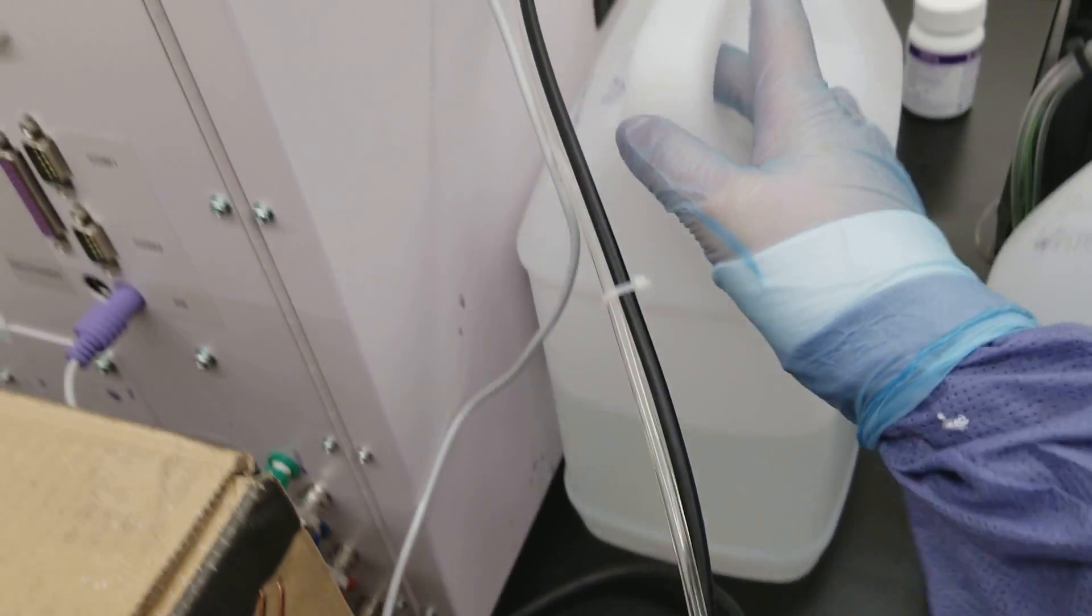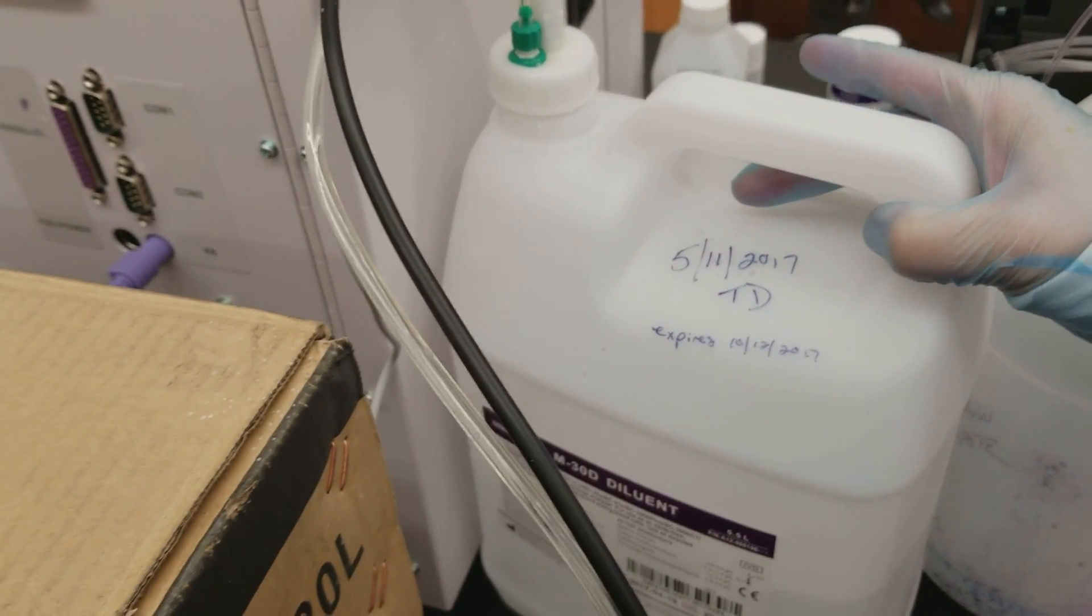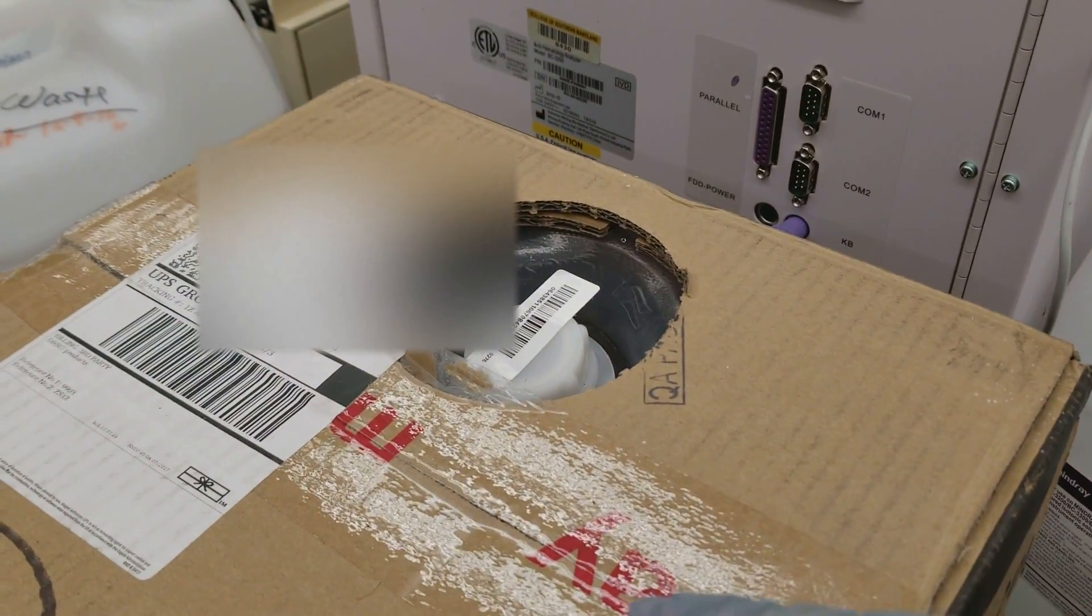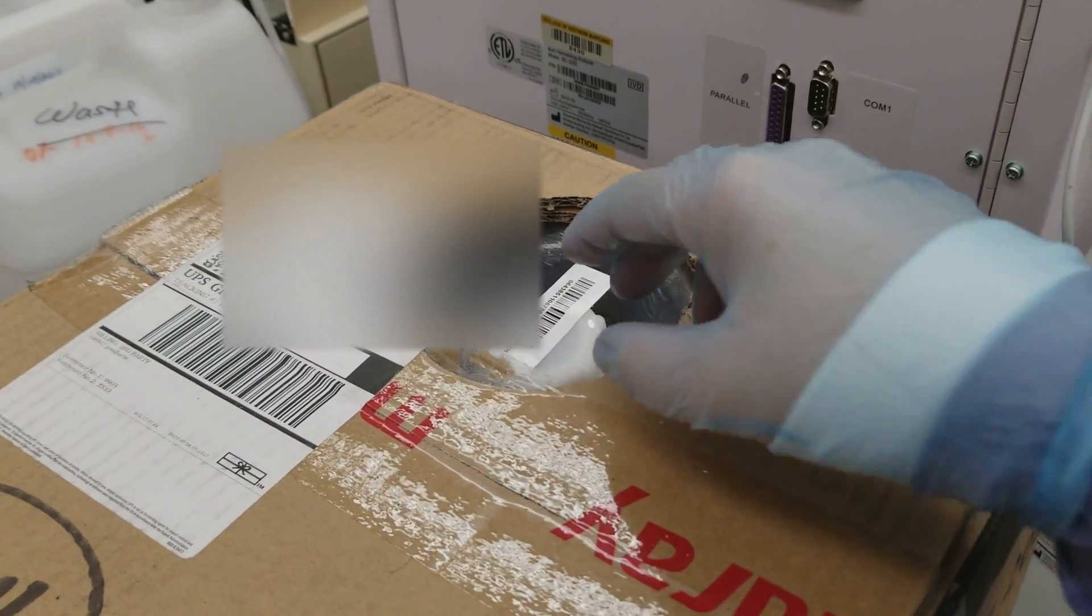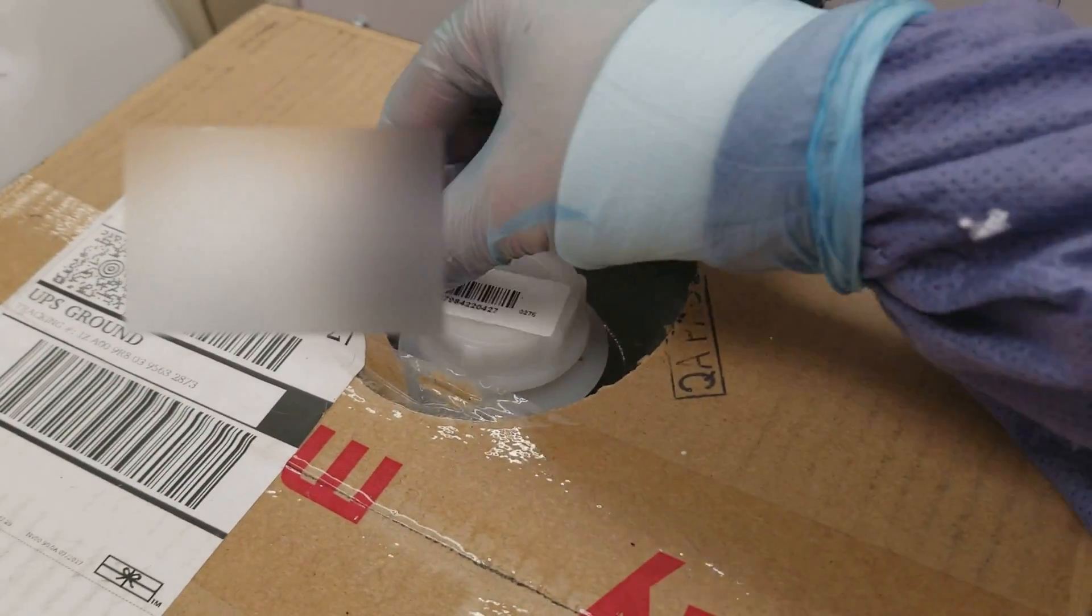So we're going from the old one which is little like this, same diluent, and we're now going to change it to this size. I did replace my gloves so that I have nice clean gloves.